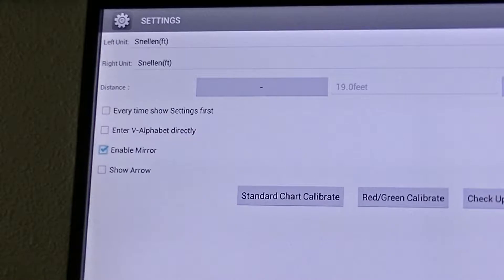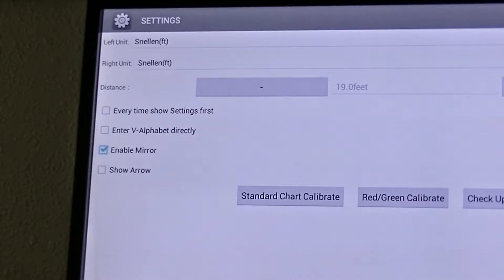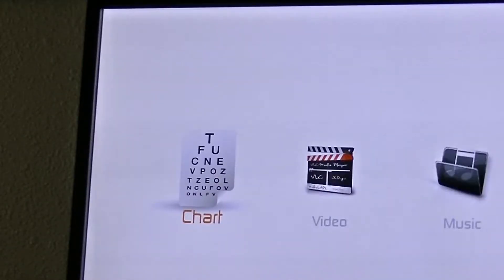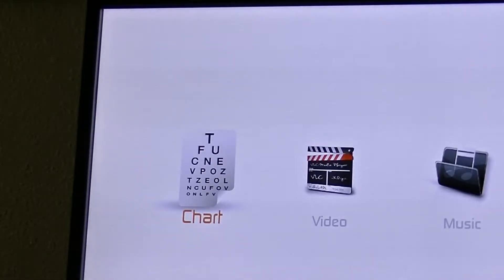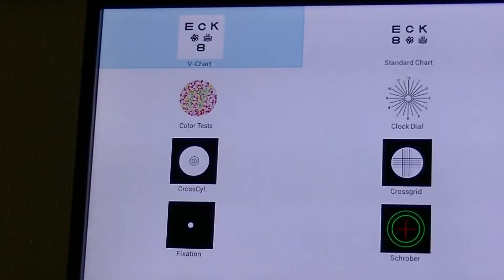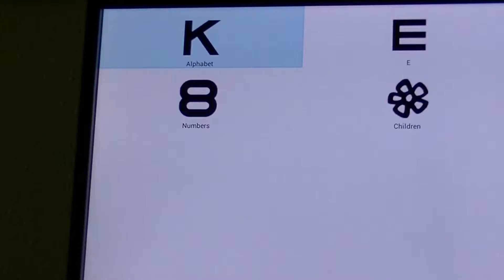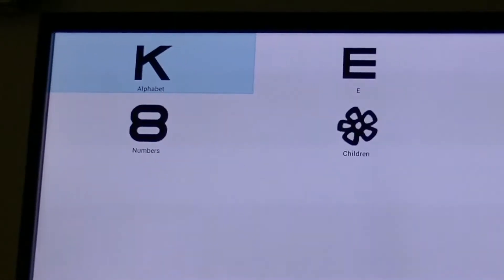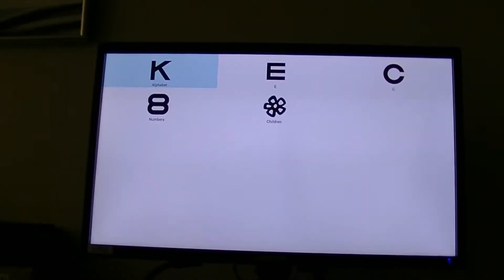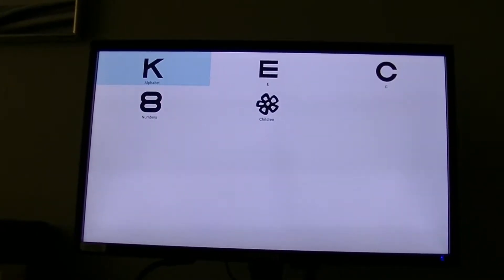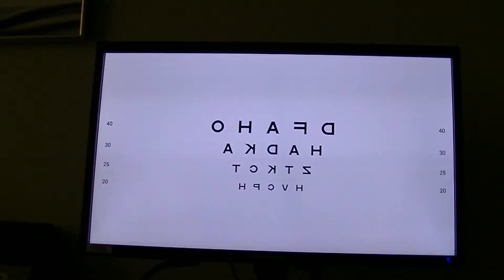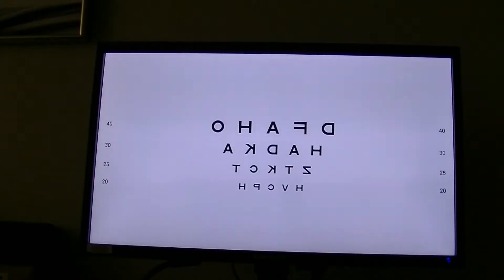So now you're going to go back out by using the rewind button — the one that goes to the left on the left side of the remote control — and you're going to go back to chart. Now when we go back into chart and select V chart, you have options here to select different letters you want to begin with. Let's just choose the alphabet. Now you notice it's reversed and it is automatically set for the 19 feet mirror distance.